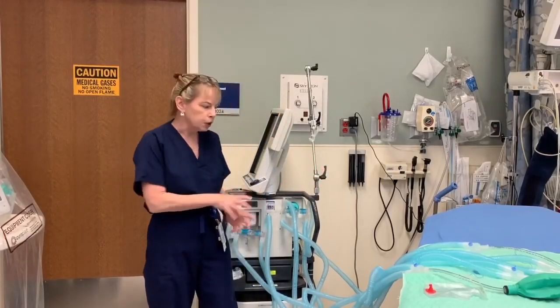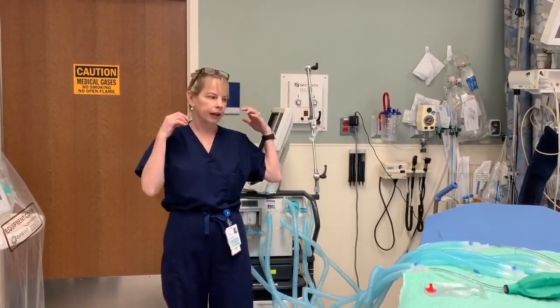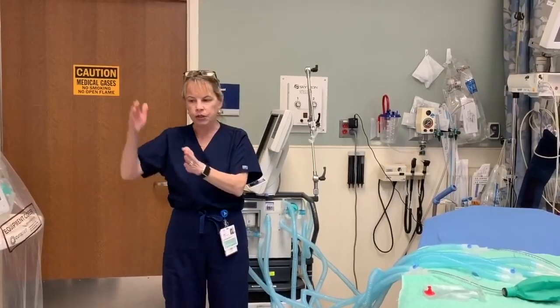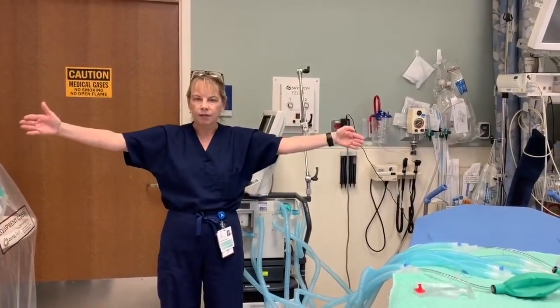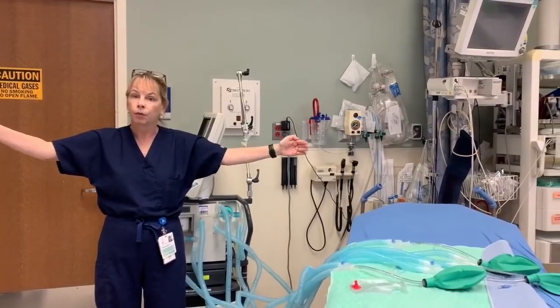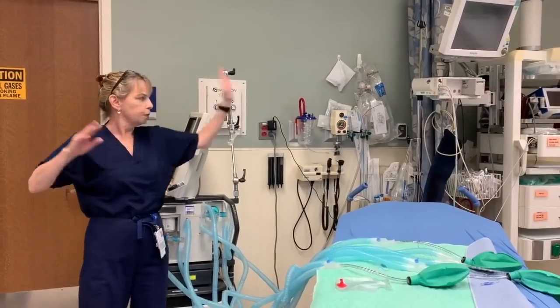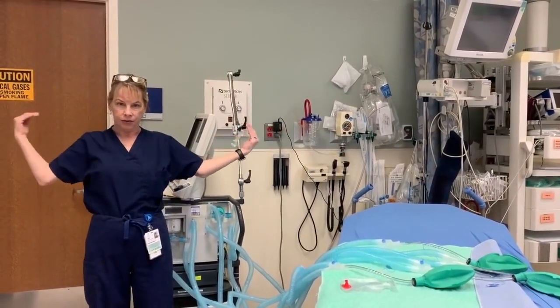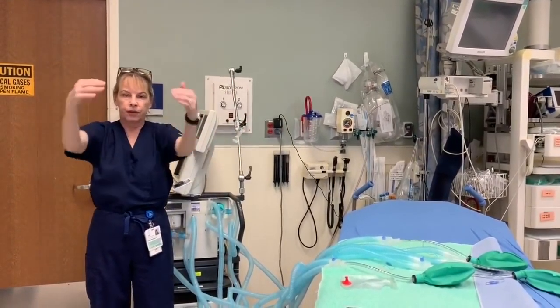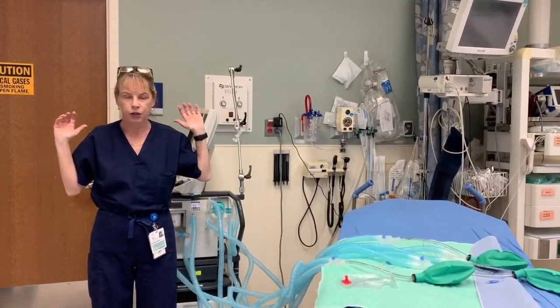Additionally, in the study we used the same length tubing for all four test lungs. So if you had one ventilator with four patients in a row, the patients on the outside might need extenders for the tubes to reach. For that reason, I would suggest what I call a half-star configuration — the ventilator in the middle, two patients on either side with heads facing the ventilator, and two patients in front with heads facing the ventilator — so the same length tubing can reach all four patients.